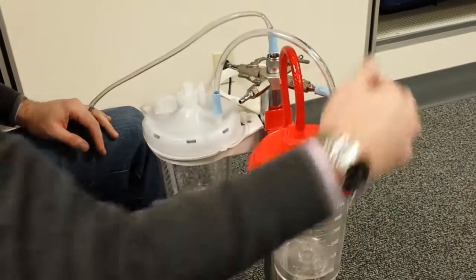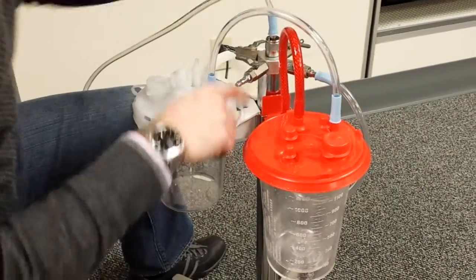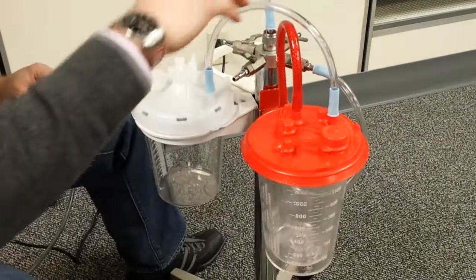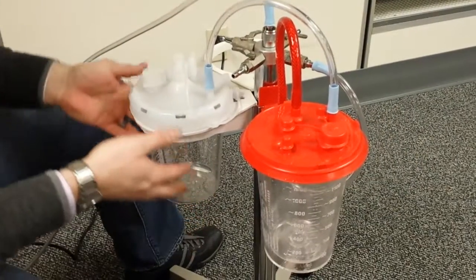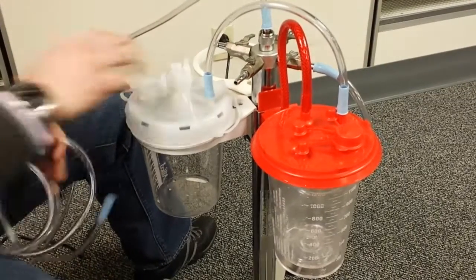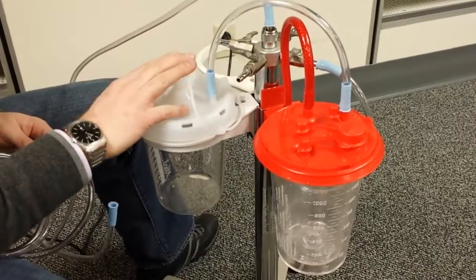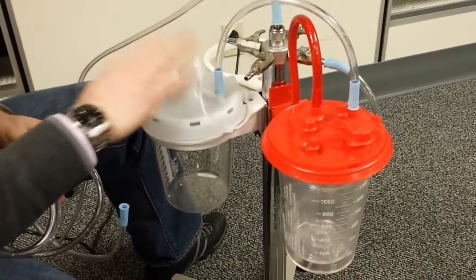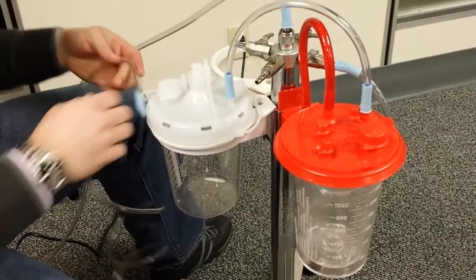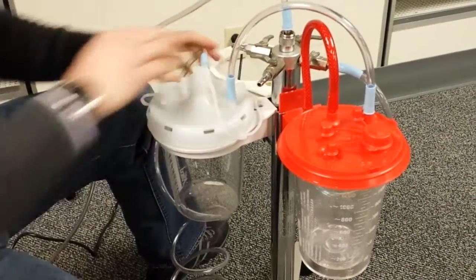So you're creating a continuous suction from the source through here up over. When it fills up, because there's no filter on the ortho port, it's going to come through here, and you're going to fill this one up. Obviously it's coming from the patient. So you cap off, make sure you cap off your inlet. That's made for only if you're using one canister at a time. You cap off everything else except for the patient port.